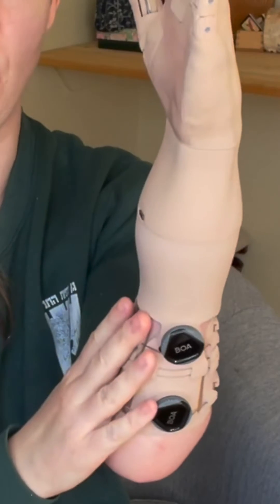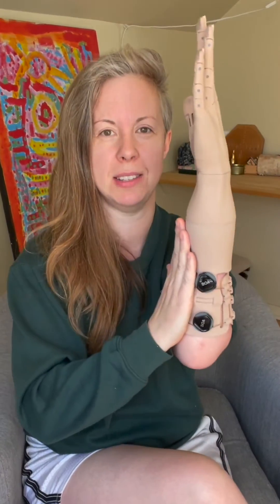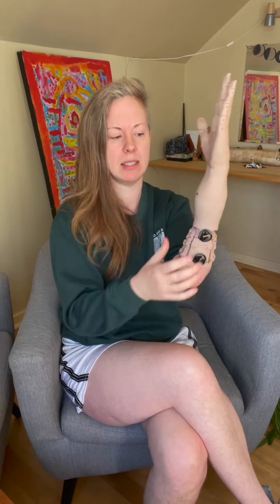This is how my bionic arm works. There are sensors on the inside of the arm that are squished up against my skin, based on the pressure the arm is using to stay snugged up on my stump. These sensors, which are right here in my case, are feeling my muscle movements and reacting to my muscle movements.